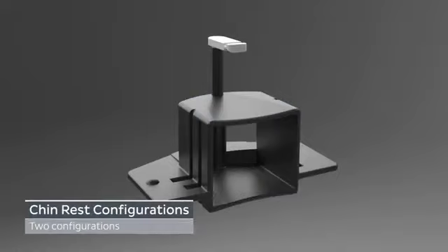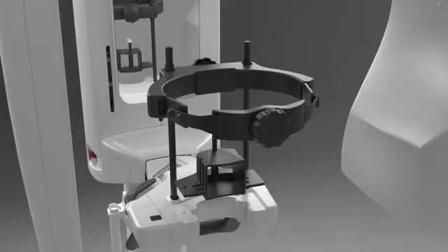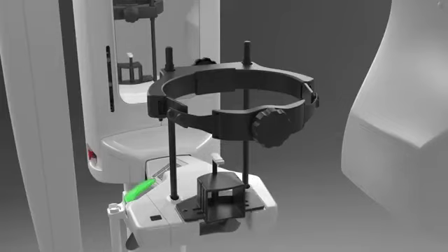There are 2 chin rest configurations that can be used when acquiring a 2D panoramic image: Standard Panoramic and Pediatric Panoramic. Both require the bite block and chin rest, except for edentulous patients that require the use of the lip support and chin rest. Pre-configure the chin rest and place it into the system.